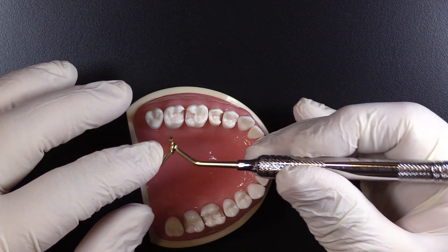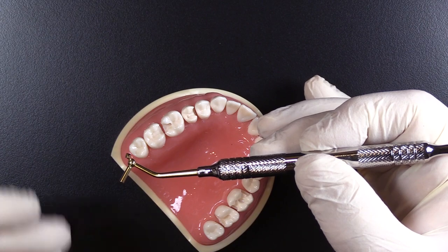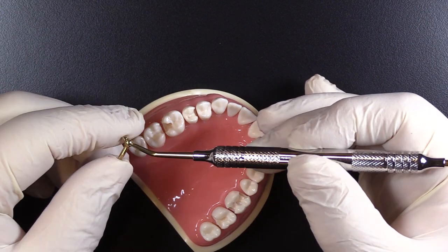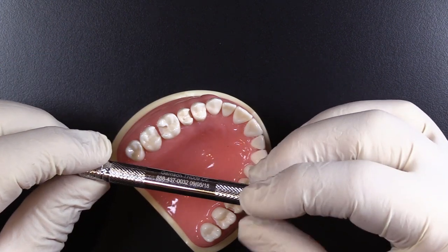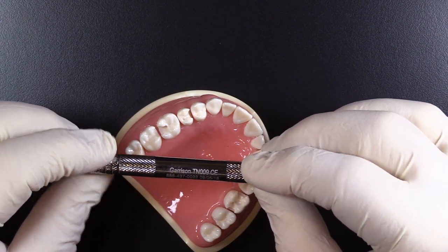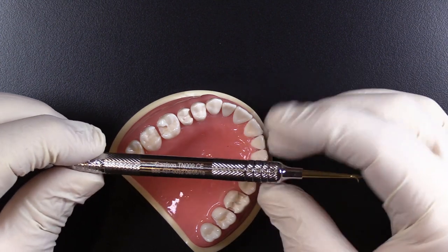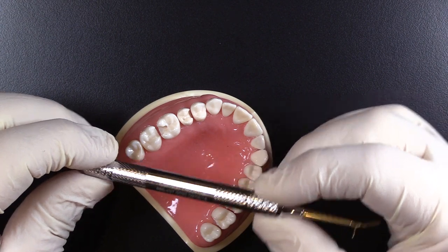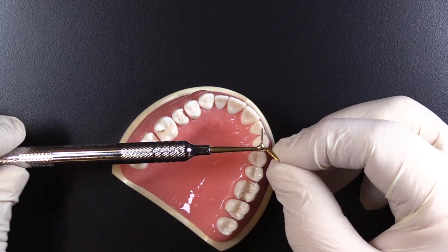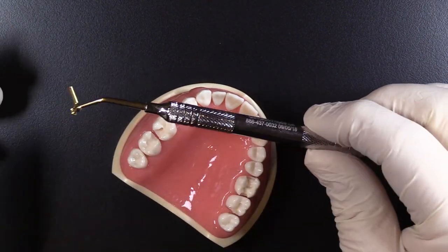The coating you see on here is a titanium nitride, which is certainly a very good non-stick material. It has a hollow, wide diameter stainless steel handle. It even has our toll-free number and part number on there, so when you want more, you can call right off the instrument. The TN-009 Multifunction Composite Instrument from Garrison Dental.